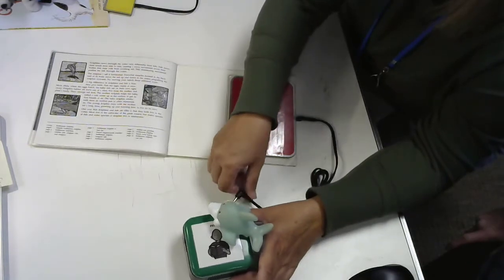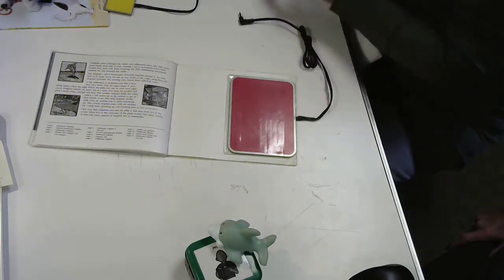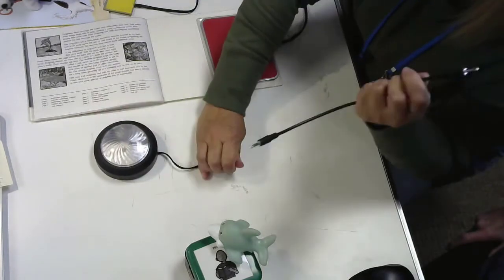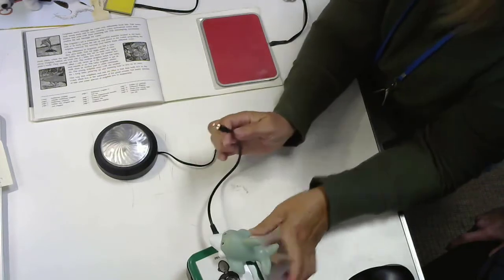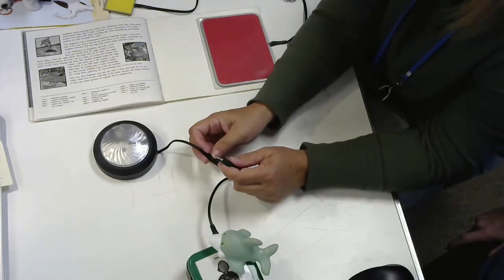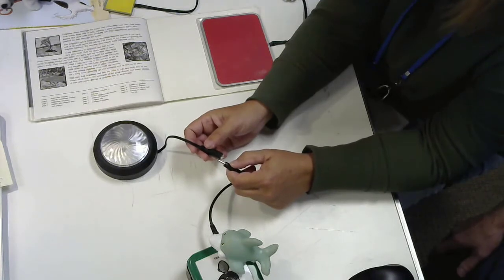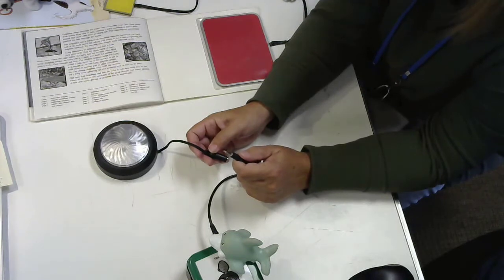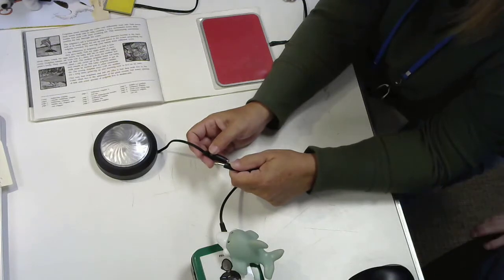Another fun feature is the relay out jack. And on this one, what you can do is you can add through a cable connector. This is your cable connector. I'll put one end in here and the other into any kind of battery operated device that I want to run. And it will run the length of the message. I like this because many of the kids that I've worked with hit their switch, but then they don't really seem to pay attention to what the message is or know that they're talking and that while they're talking, they need to look at their listener.